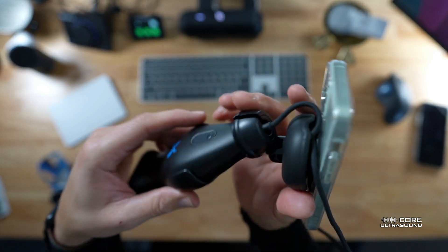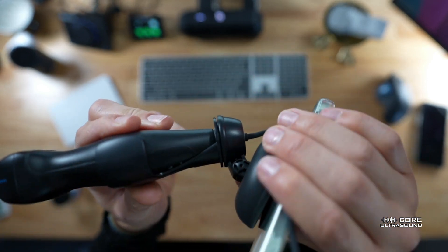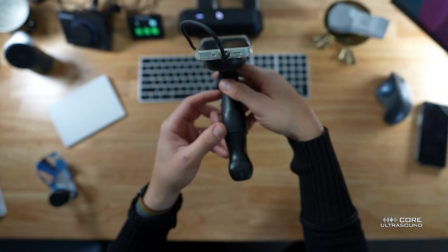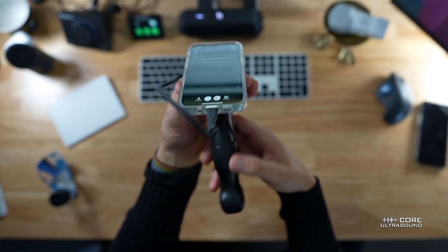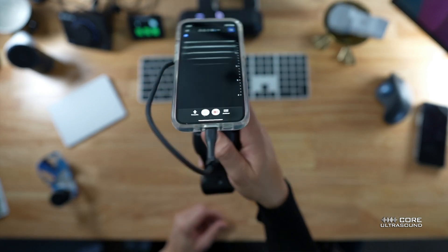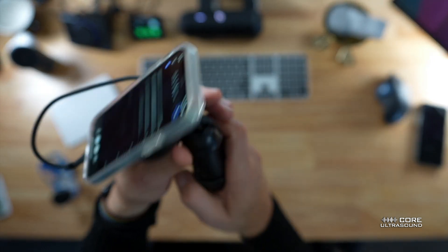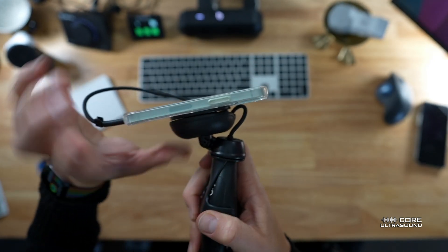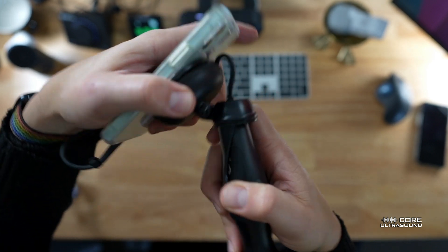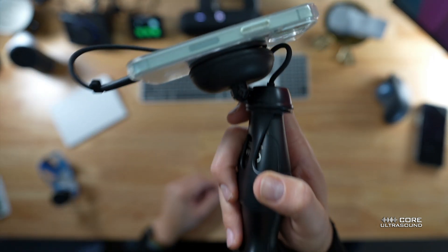You can also adjust this angle. So if you want to do an inline approach, you're good. If you want to do an out-of-plane approach — like for an out-of-plane IV — you're good to go right there. Works pretty sweet. And then, of course, you can always change the tilt angle as well, make it a little flatter or less flat.